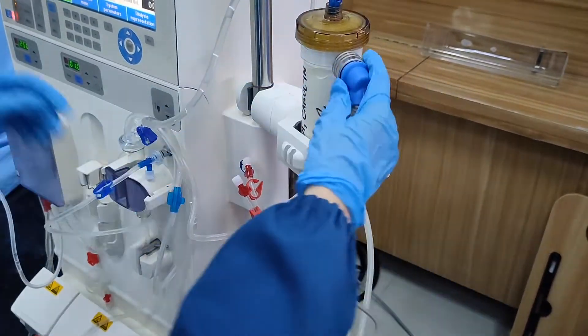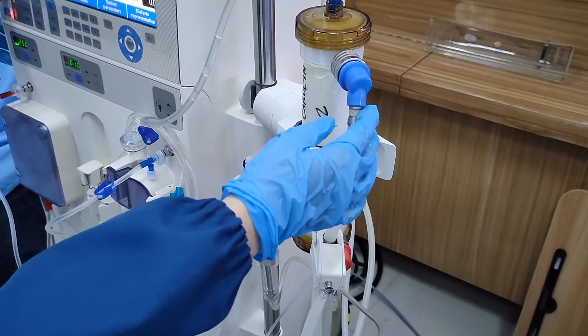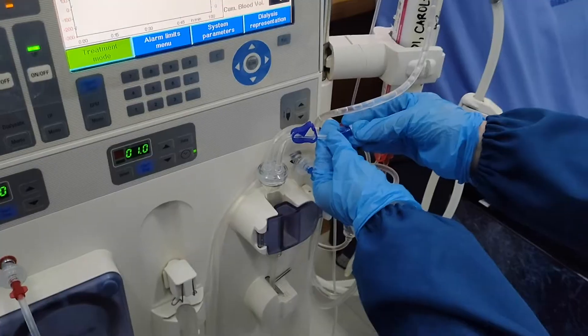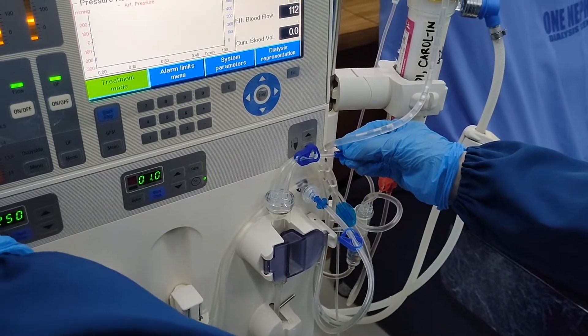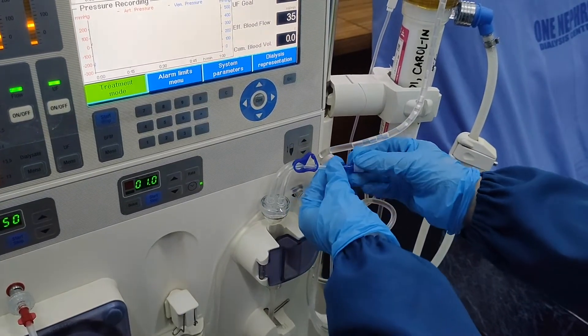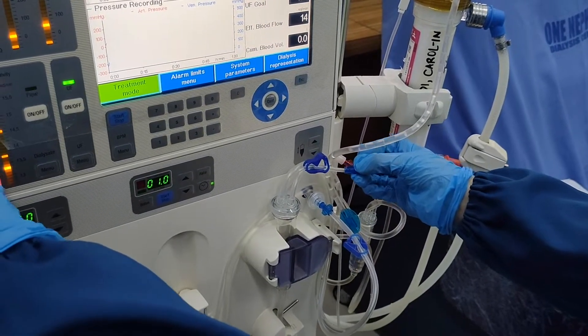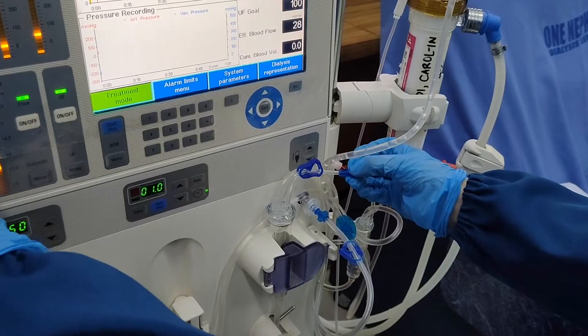Be observant and make sure to press start whenever the blood pump stops. Continuously press start button when it keeps stopping. Expel the air bubbles from the venous chamber by loosening the caps.